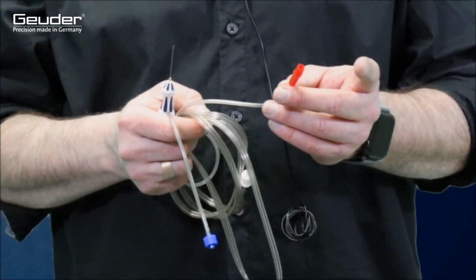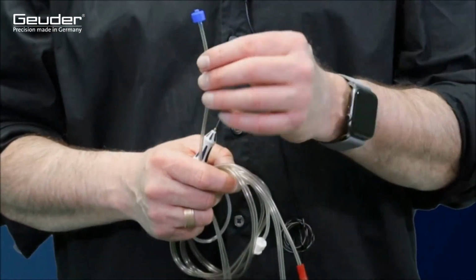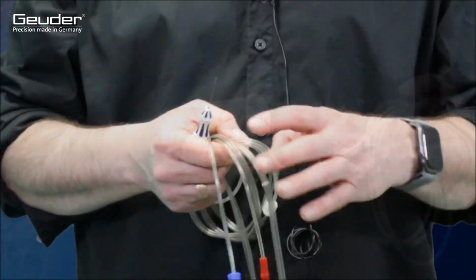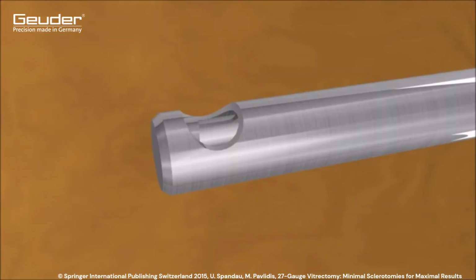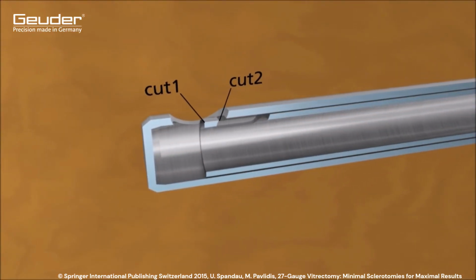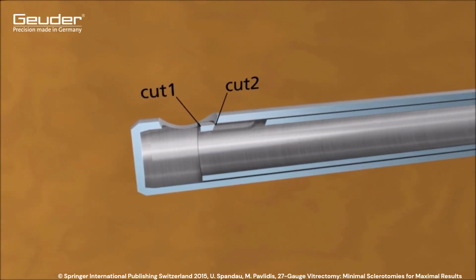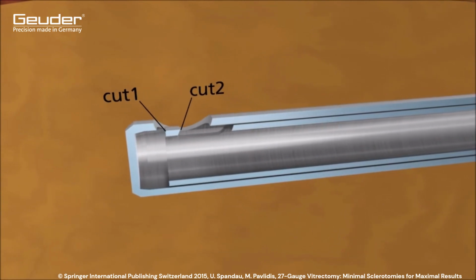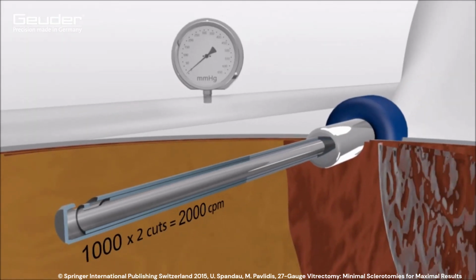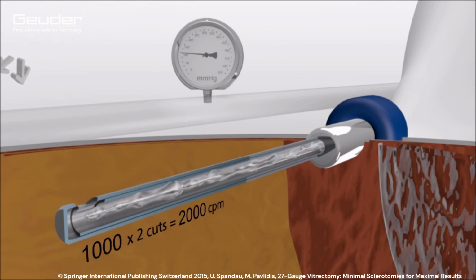The blue connection is connected to the device system and directs the compressed air to the vitrector, which realizes the movement of the cutting inner tube. The compressed air causes the forward movement and the internal spring causes the backward movement. The cutter shown here is a Mach 2 vitrector, which means there are two cutting edges on the cutting tube. Furthermore, this type of vitrector has a permanently open cutting window, which guarantees a constant and high flow. Due to the design features, the set and displayed cutting rate must be multiplied by a factor of 2.